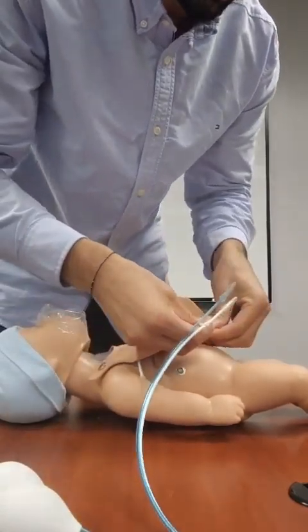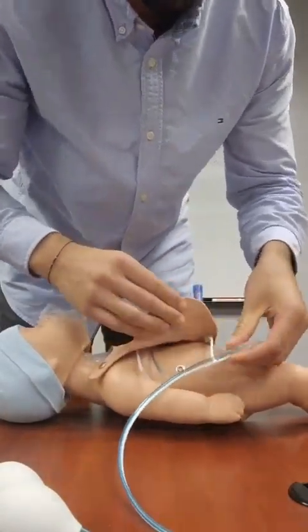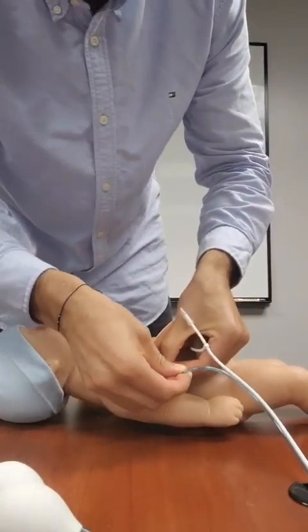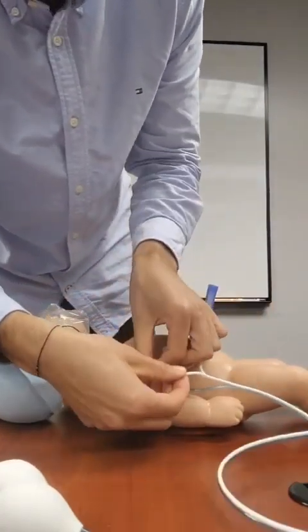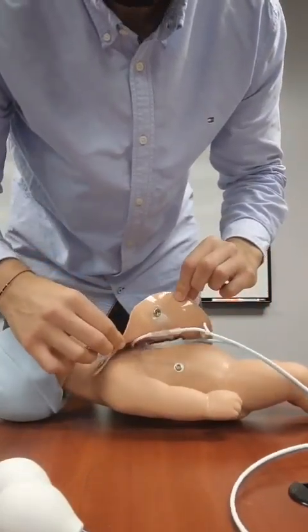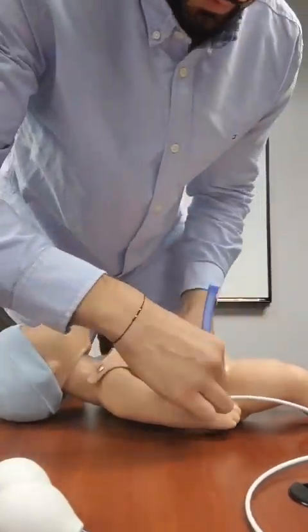These are color coded, so it's fairly straightforward, just like that. And this can be buttoned right back up.